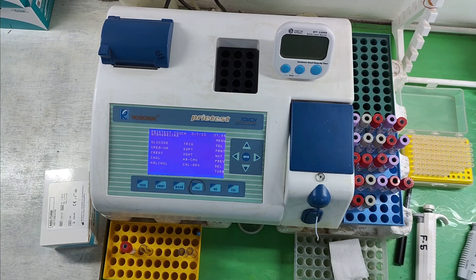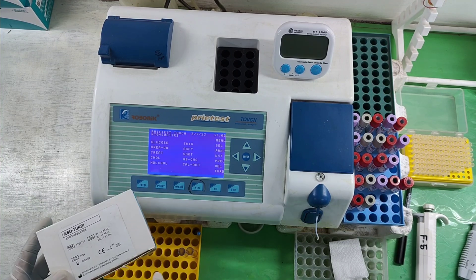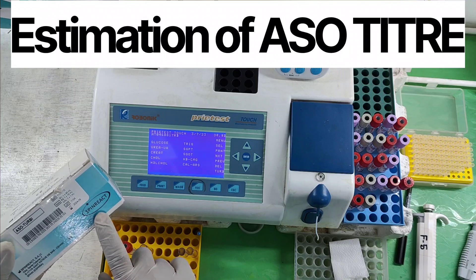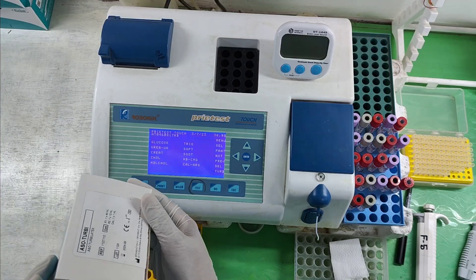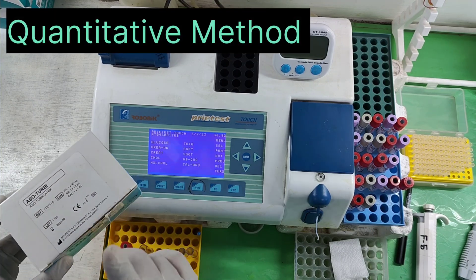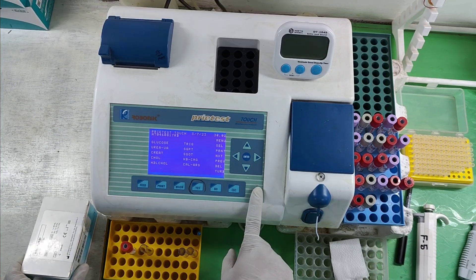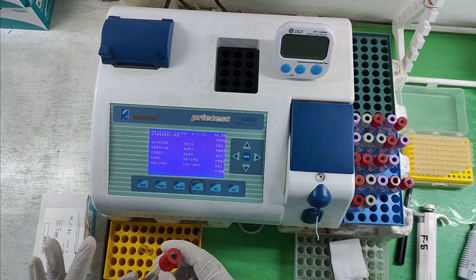Hello friends, today I am going to show you estimation of ASO titer — anti-streptolysin O antibody titer in serum — by using this Spinreact kit with a quantitative immunoturbidimetric method and a semi-auto analyzer to quantify the ASO titer value present in this specimen.